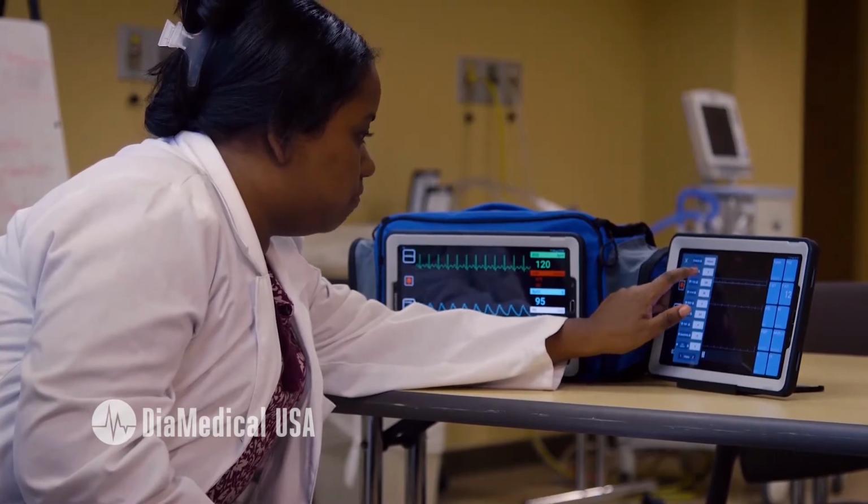It makes you be able to think critically in a real life situation. I feel like when I first entered the ICU, I was really nervous. And when I started to use the system, I felt more comfortable using the ventilator. I think it would be a good system to use for students who are trying to make a bridge into the medical field, just to be able to get comfortable with the ventilator and use those settings.